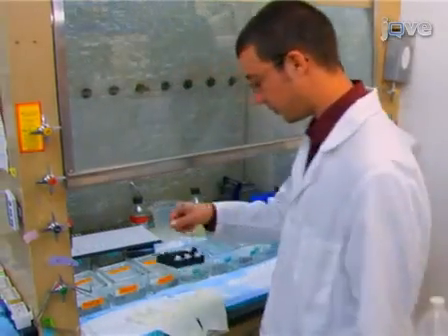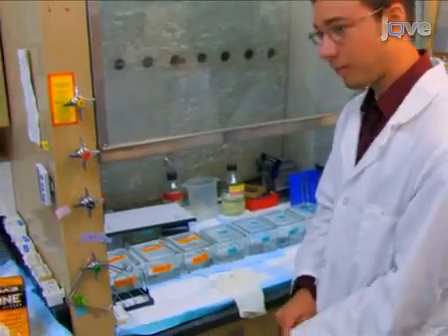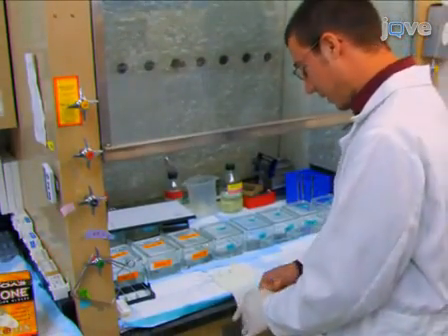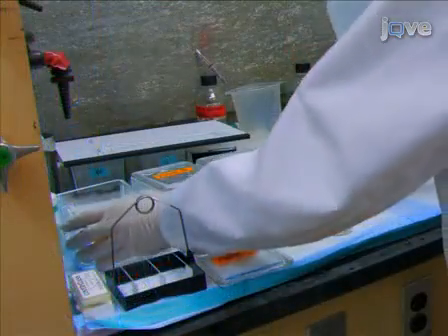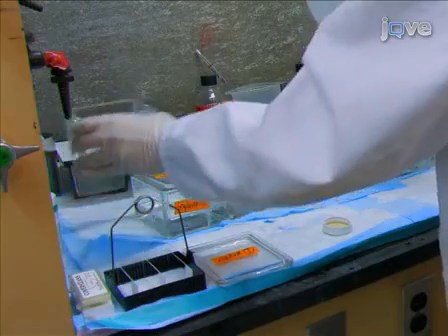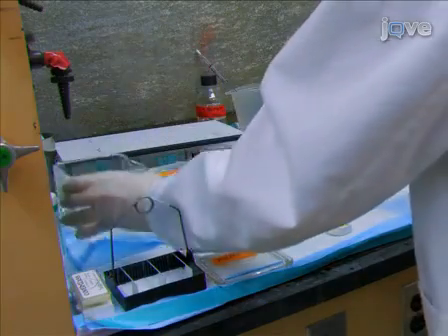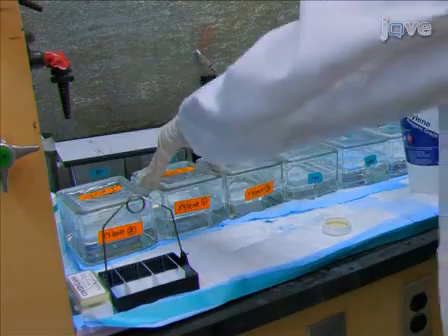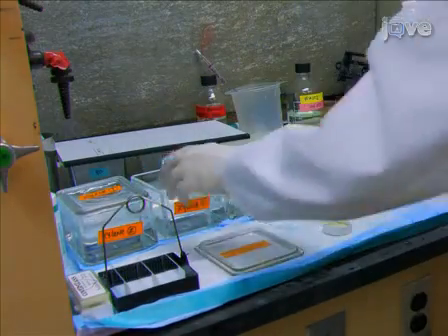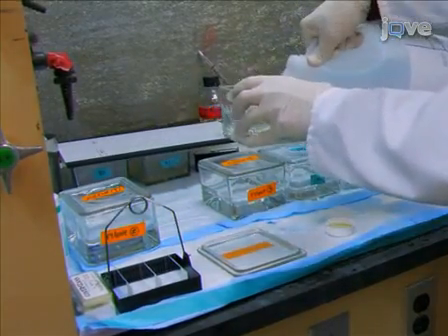The procedure for immunostaining the previously prepared tissue sections should be carried out under a chemical hood with negative air pressure so that the experimenter is not exposed to the vapors. The protocol we use is a fairly standard one. However, to get results similar to ours when you use this protocol in your lab, adjustments may be needed to take into account variables such as water quality, microwave power, and concentration of antibodies. In this video, we will demonstrate Pms2 immunohistochemistry.